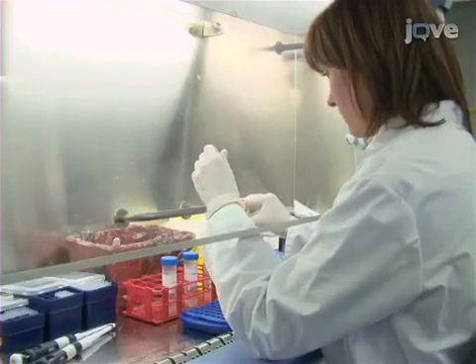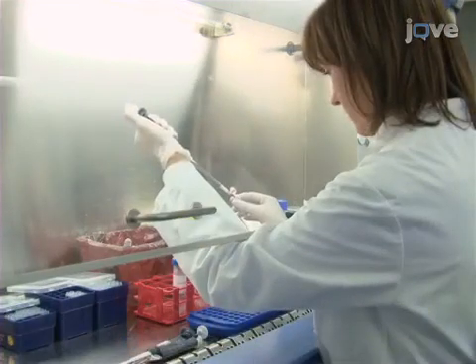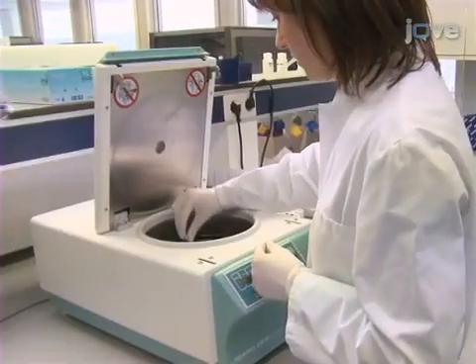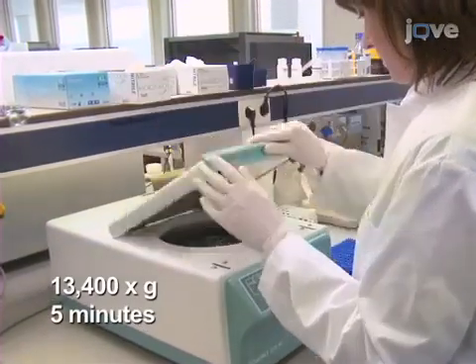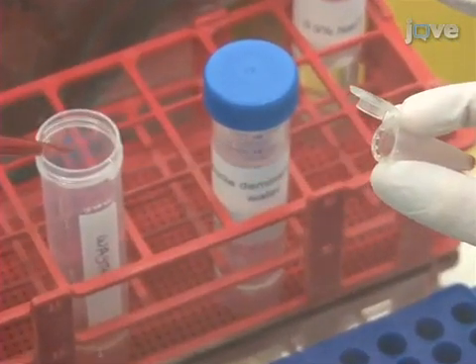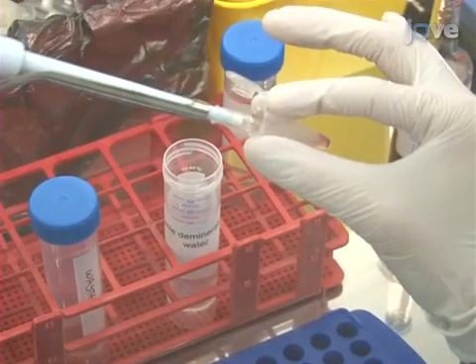Dilute 100 microliters of blood culture positive for microbial growth in a reaction tube containing 900 microliters of 0.9% sodium chloride. Then, centrifuge the sample at 13,400 times G for 5 minutes to pellet the bacteria. Following the centrifugation, resuspend the pellet in 100 microliters of sterile demineralized water and store the sample at 4 degrees Celsius.